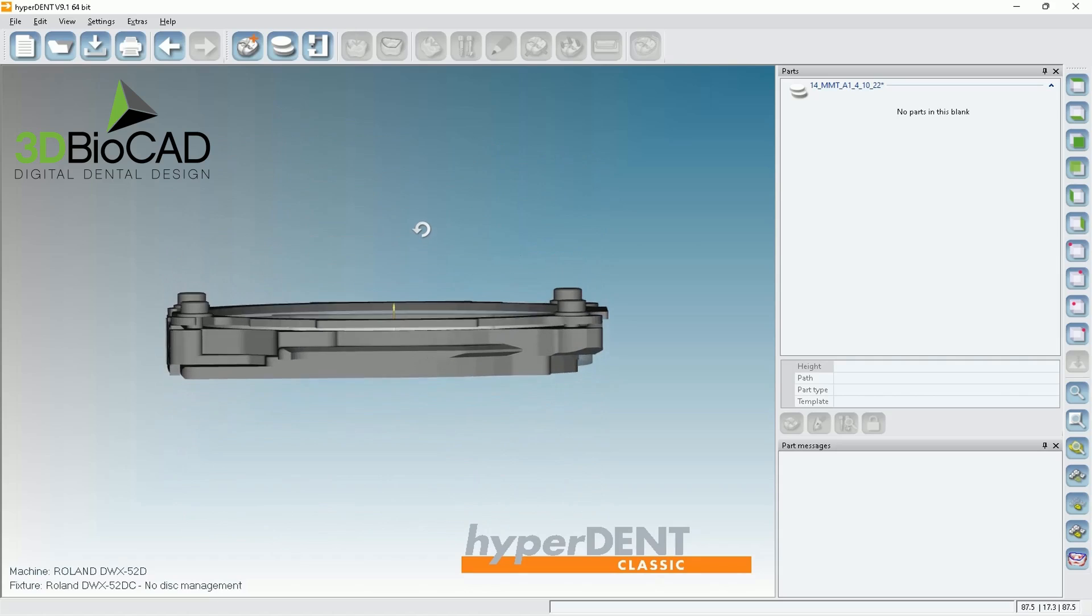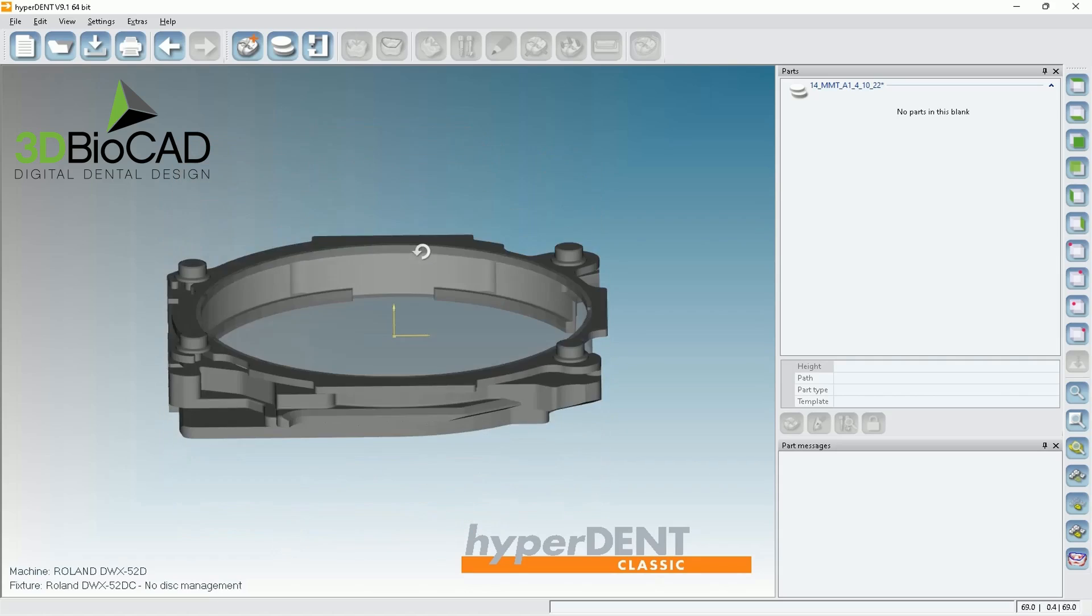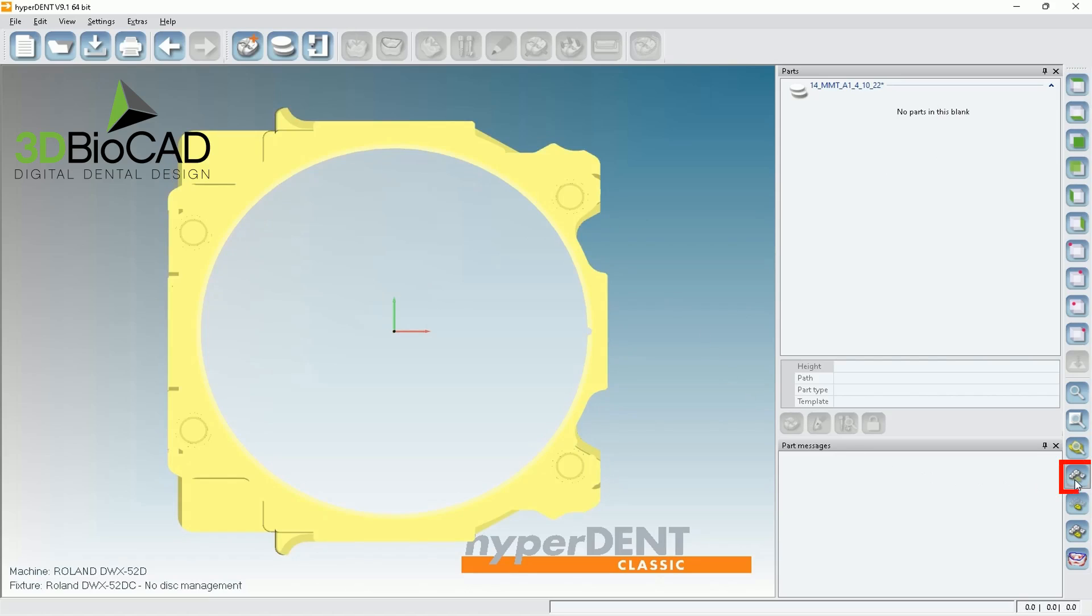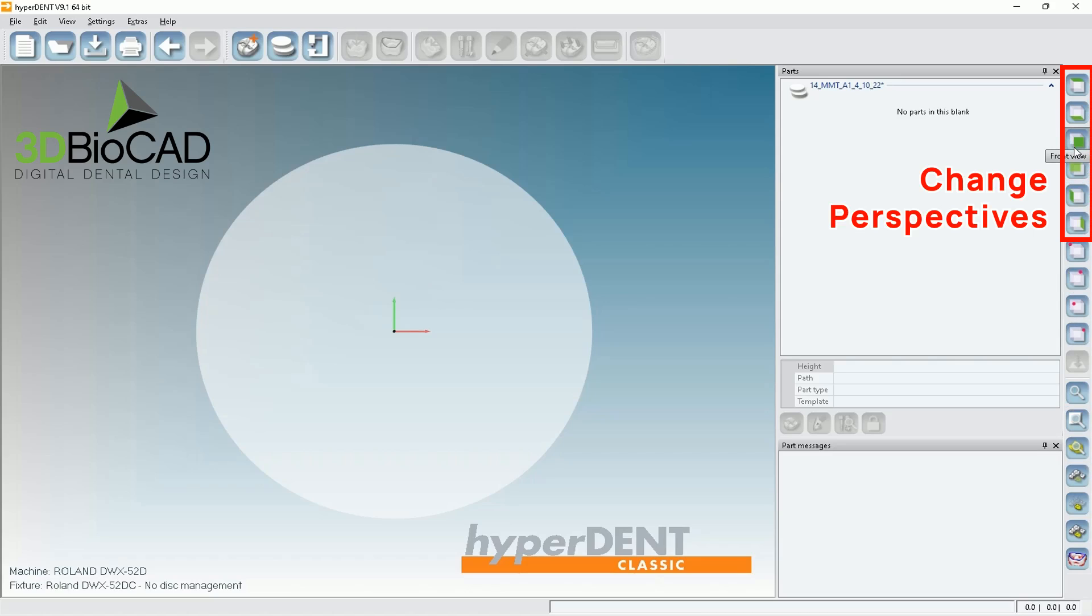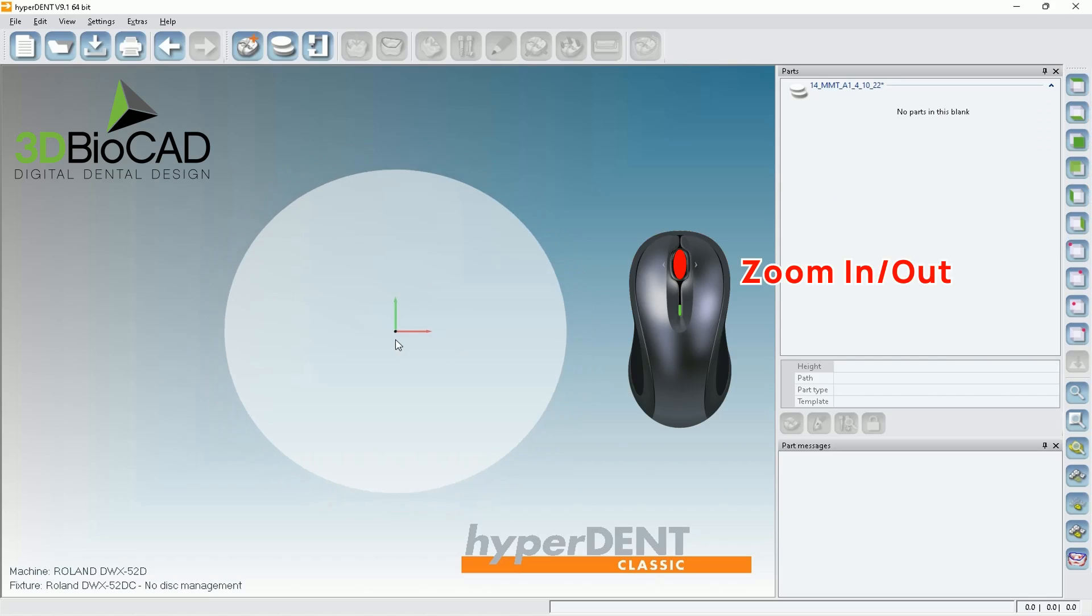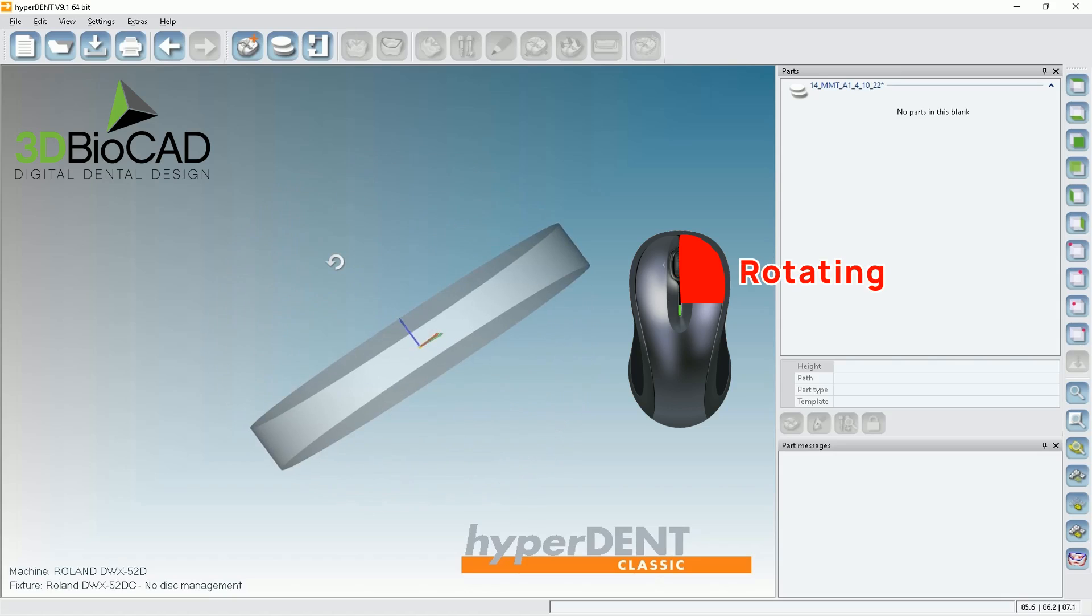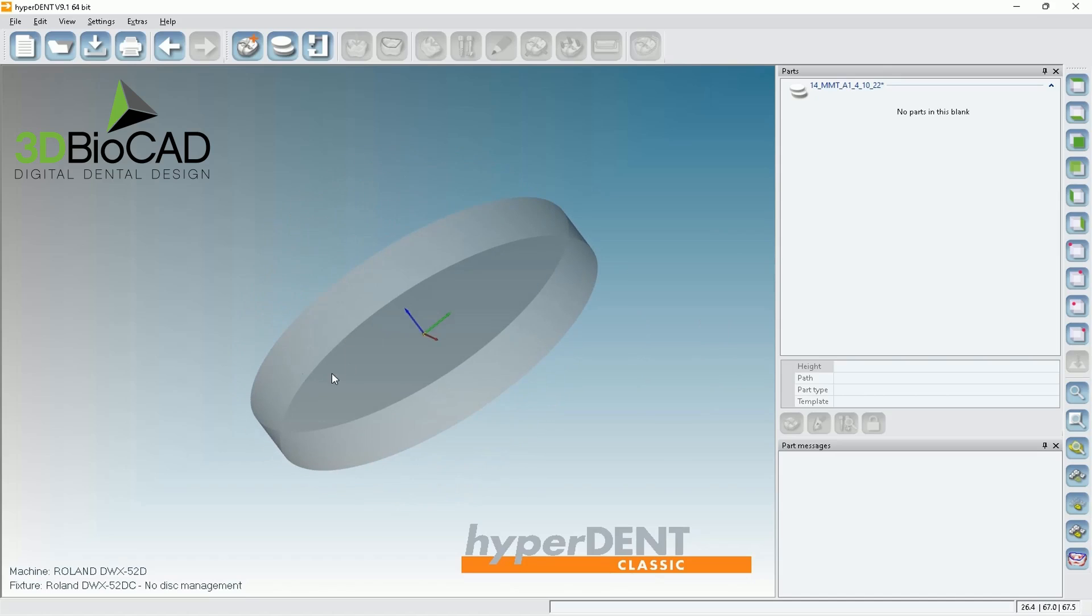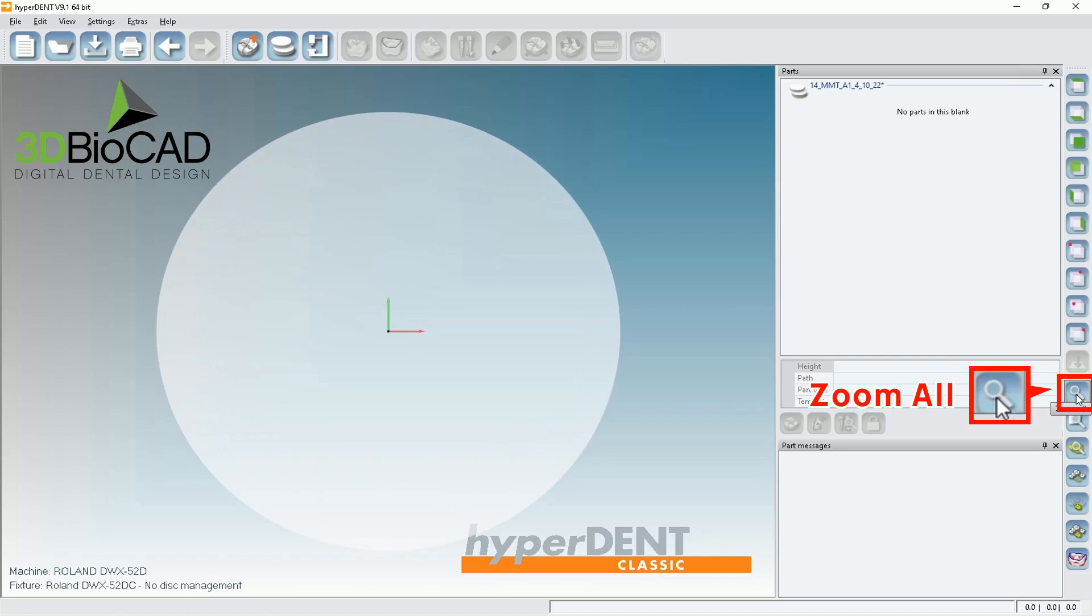Then, the computer will generate the blank. It's hard to see right now, but let me get rid of. Let's go ahead and select the fixture and hide selected. Then, it will get rid of the fixture. Then, you're able to look at the blank. So you can zoom in and out and rotating by clicking on the right button from the mouse. But a lot of times, it's hard to set exactly where you want to put it. So I utilize this top view a lot of times. And I use the zoom all a lot too.